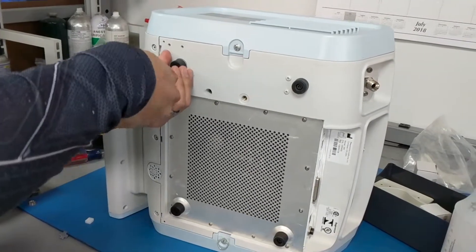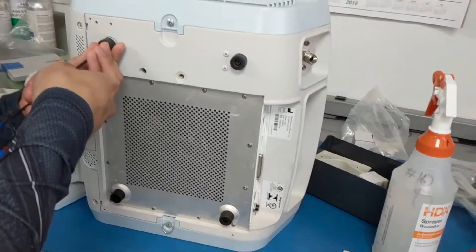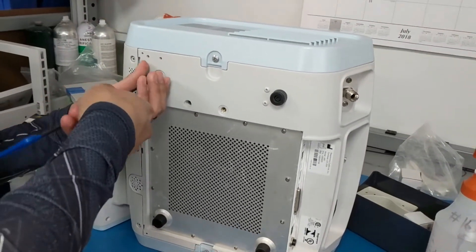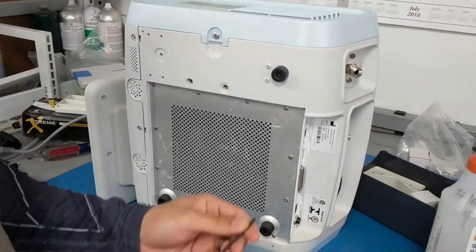Pretty standard. So what we're going to show you right now is how to remove the four feet and then mount it onto the cart.